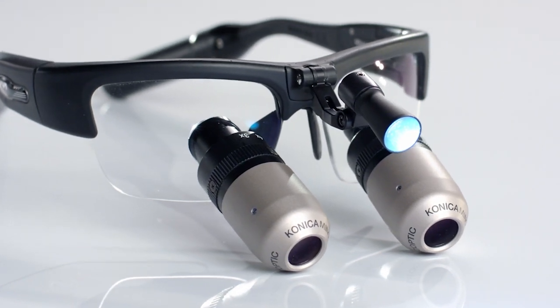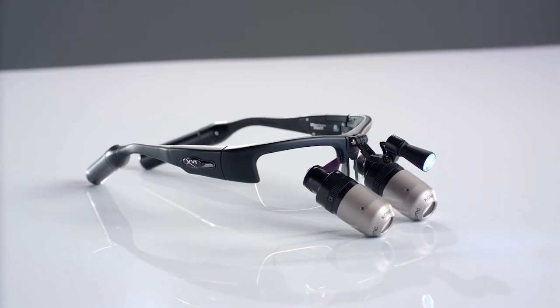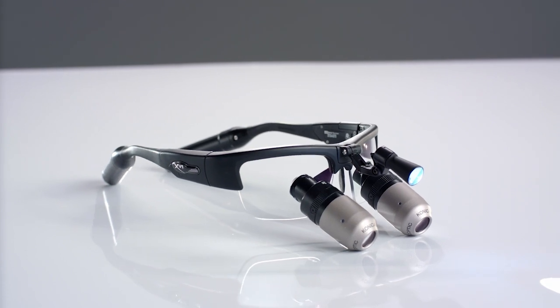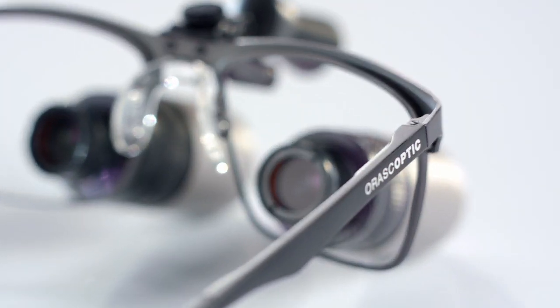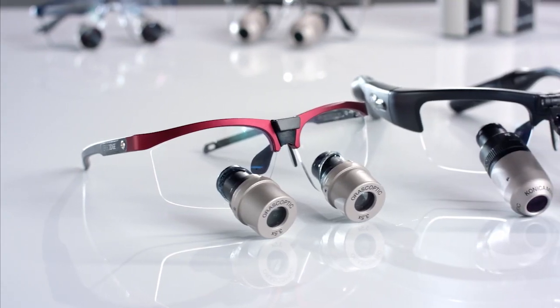What sets Orascoptic Loupes apart? It's more than their expert optical design. More than the premium materials they're made from. More than the handcrafted care they're made with. What sets Orascoptic Loupes apart is you.